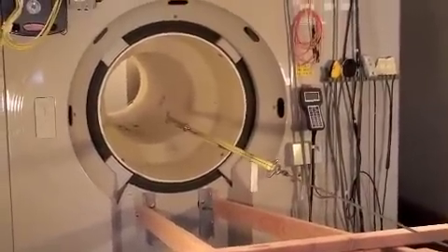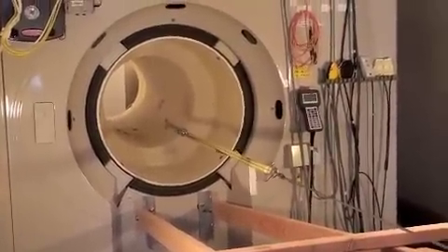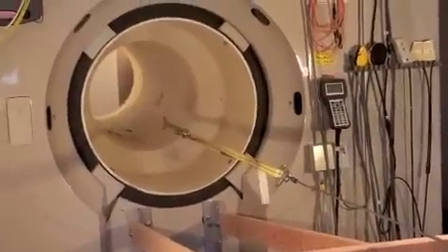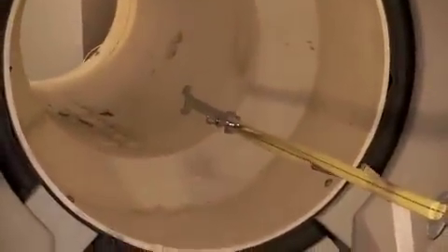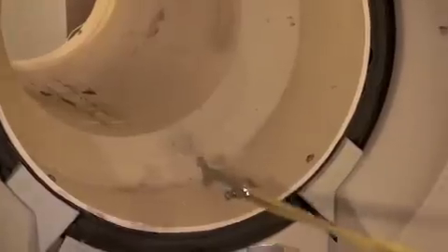It's going to attach itself to the bore. Any second it's going to start dropping. Just do enough. There it goes.